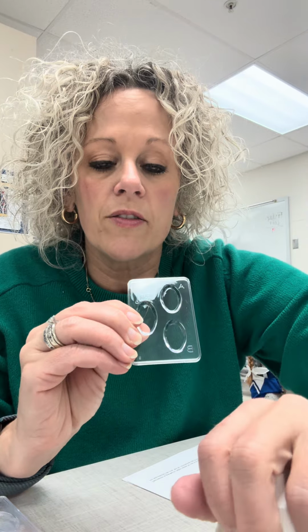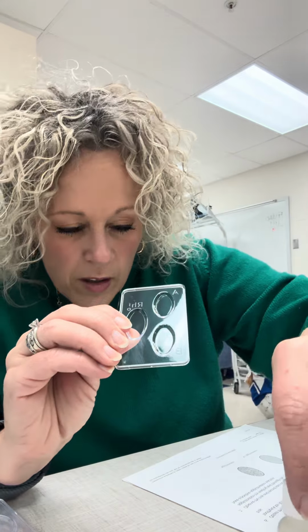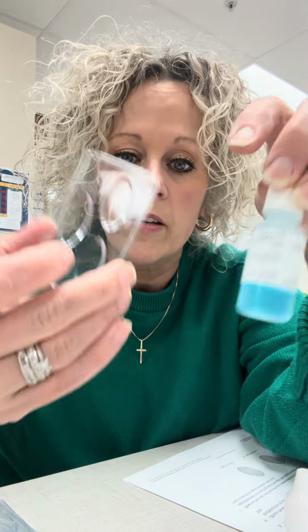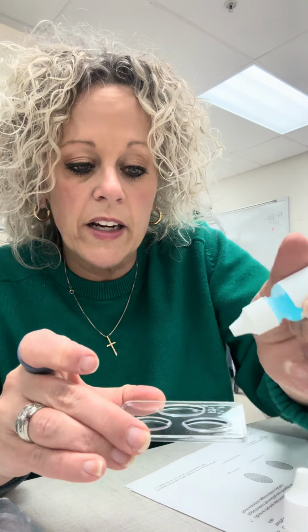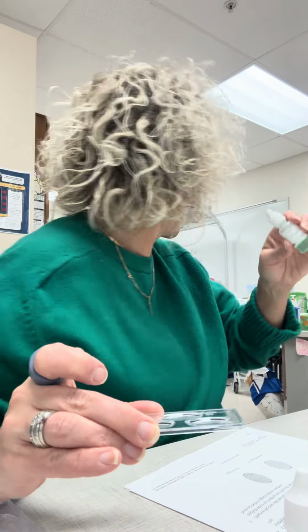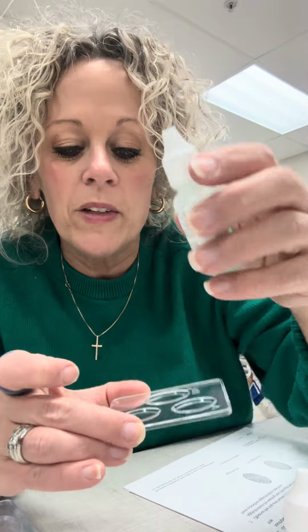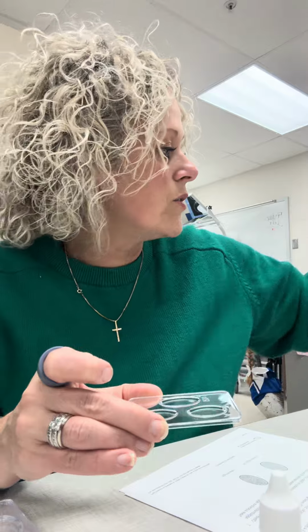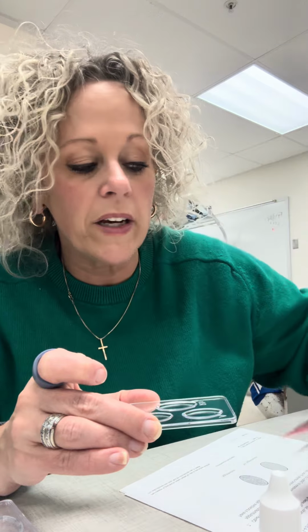Then you have the different antibody serums. Which one says A? All right, so this says anti-A serum. That is only going to go in the A well. So my blood is already in here, and I'm going to put 3 drops of anti-A on. Then I'm going to put 3 drops of RH serum in the RH well. And then I've got B that's going to go in B. And then I've got these little disposable toothpicks, we're actually going to wash these off. One per well, don't cross-contaminate. You'll stir it up.